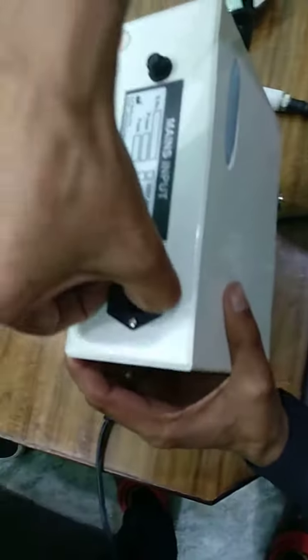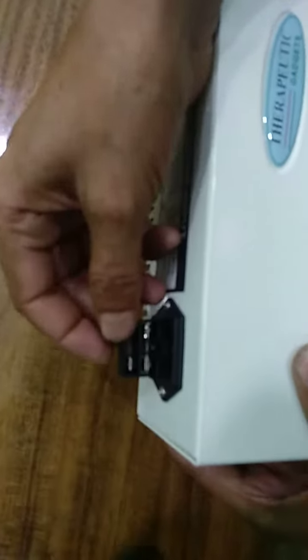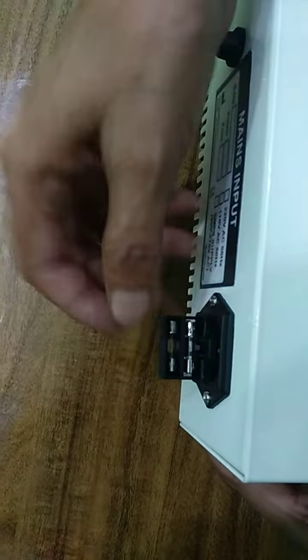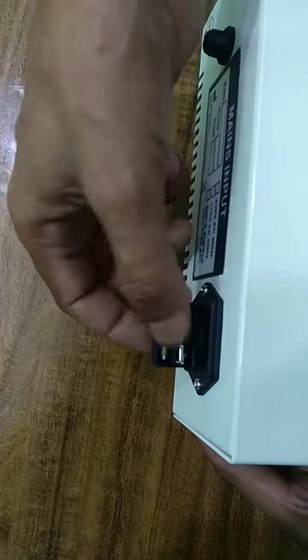Please remove this tray. There are two fuses — only one fuse is working, and another is a spare fuse for future reference.